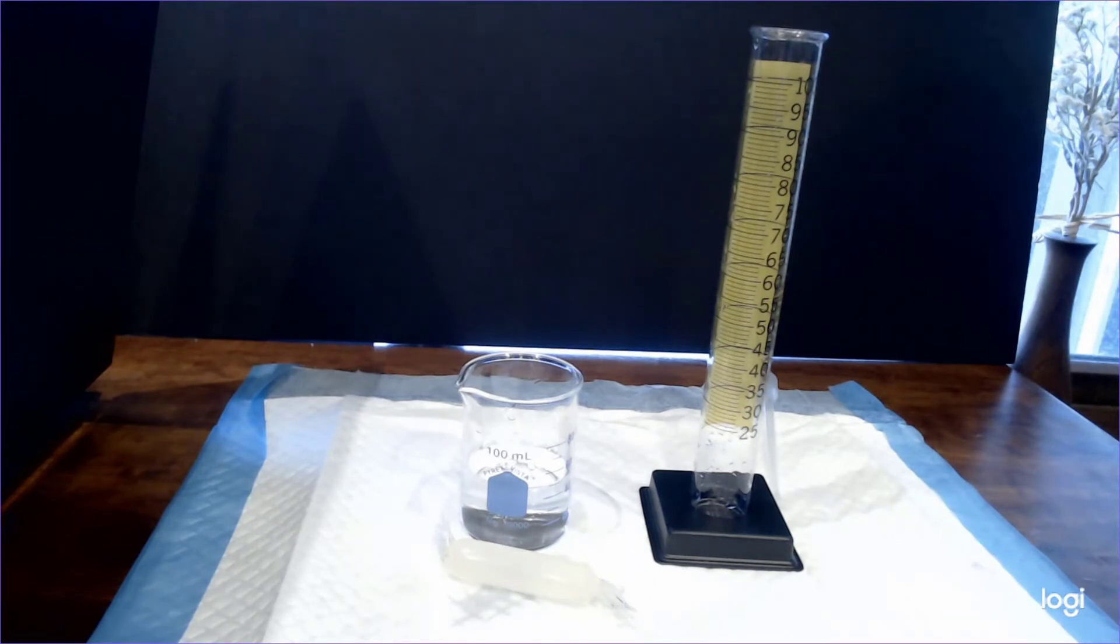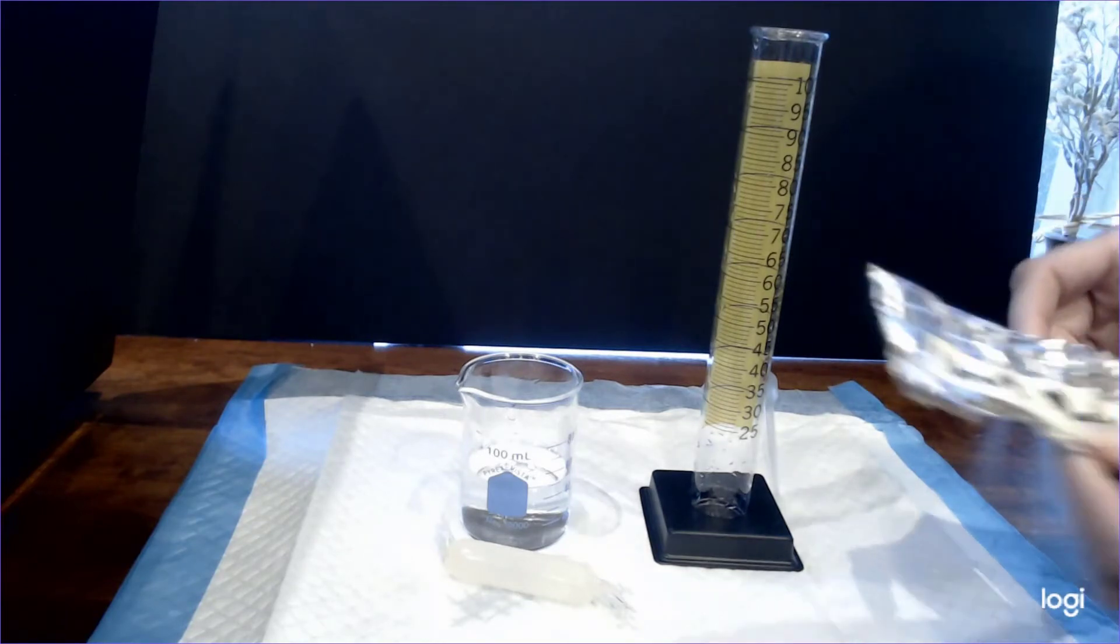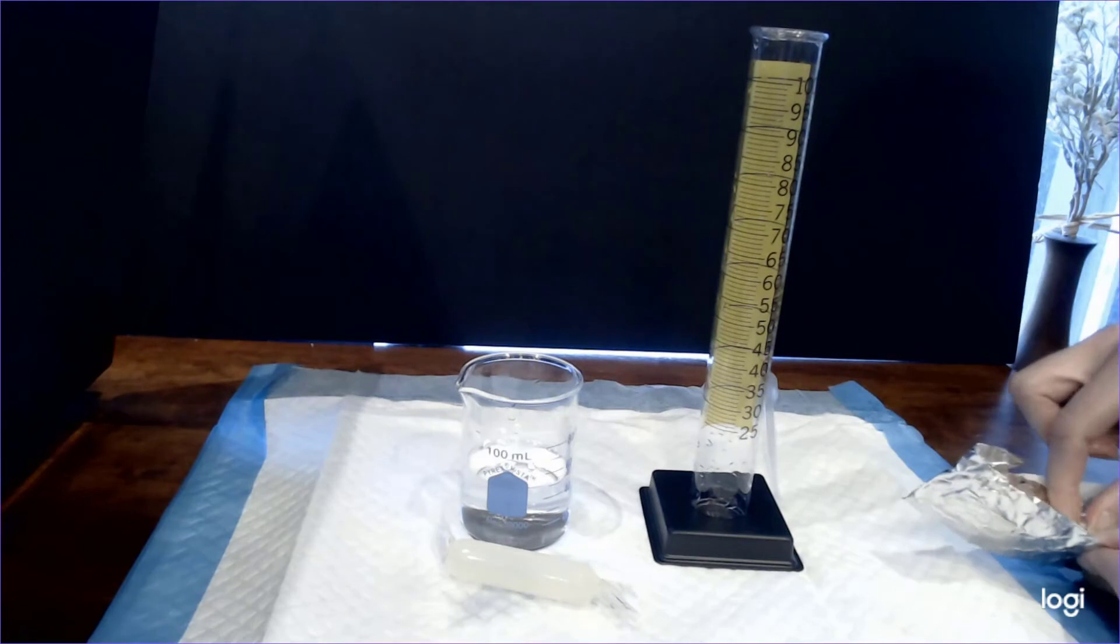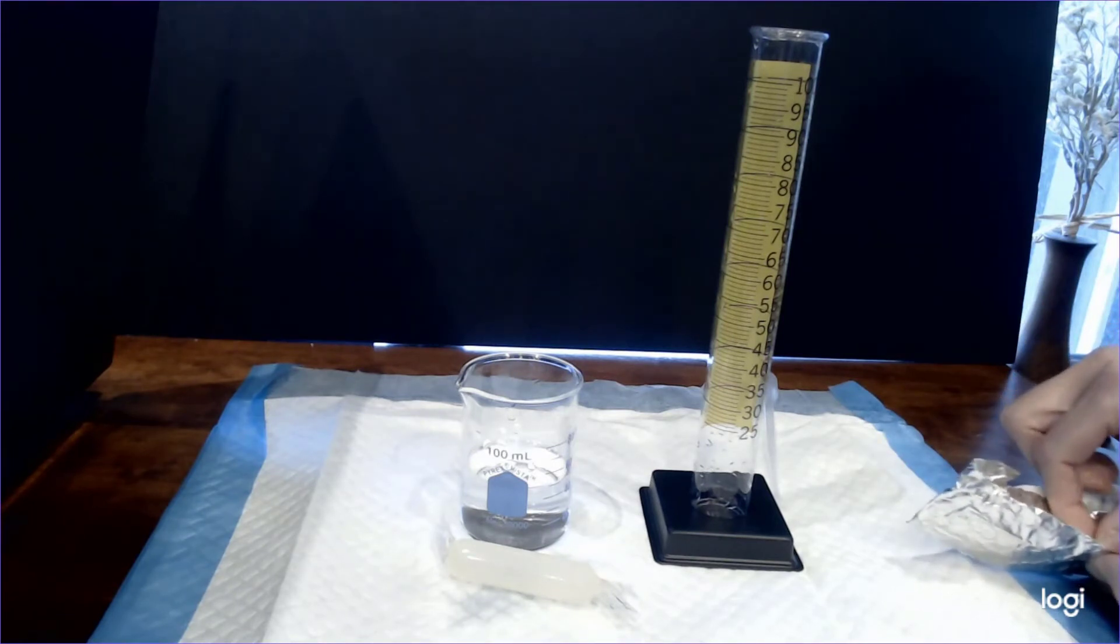In our modified experiment we are going to use urine multi sticks to test for the presence of sugar and protein. So in your urine kit you'll find some foil and if you open that up you'll see that you have some dipsticks.